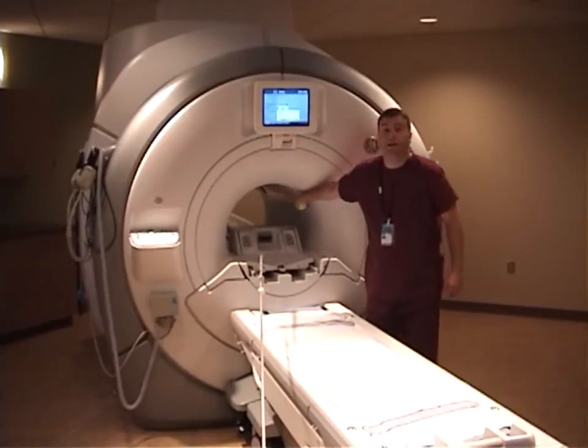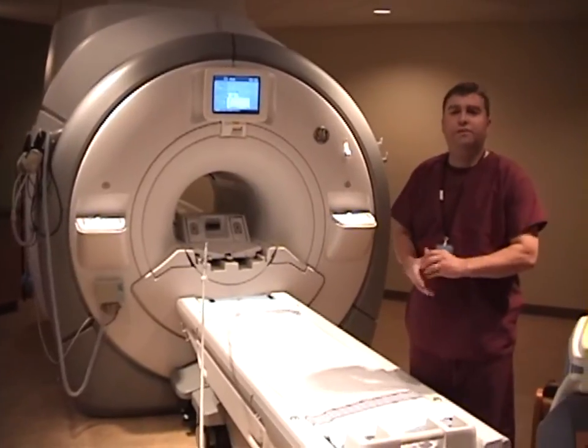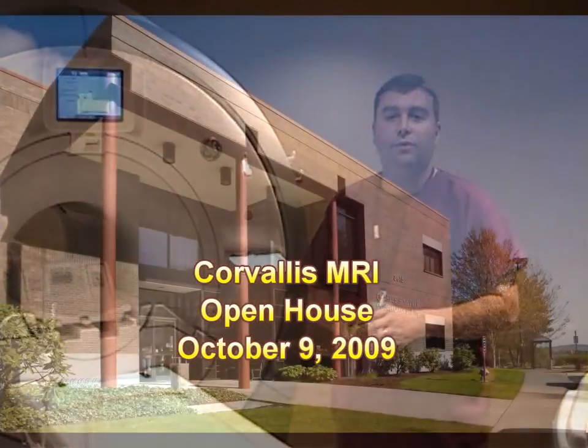So you scared me — why wouldn't patients be worried? Well, you always want to have a respect for the magnet. Patients wouldn't be worried because they're screened thoroughly. We have books and many resources to make sure we don't put something in there that shouldn't be in there. We're very on top of it — better safe than sorry. We'll turn patients away if there's any doubt. The patient and the doctor both have to certify they don't have metal parts, and patients often carry cards describing their implants. For example, titanium is a non-ferrous metal, and certain stents — like coronary stents — usually pass clearance.